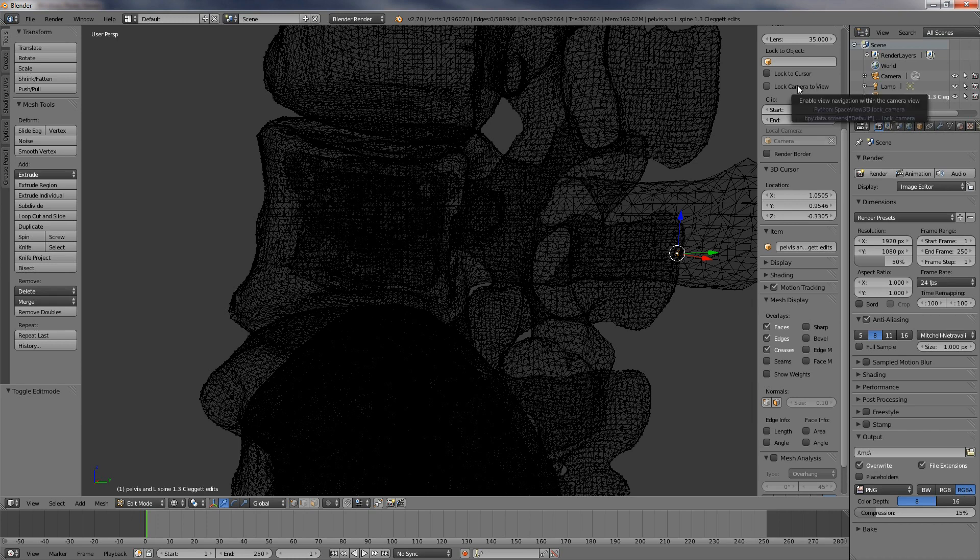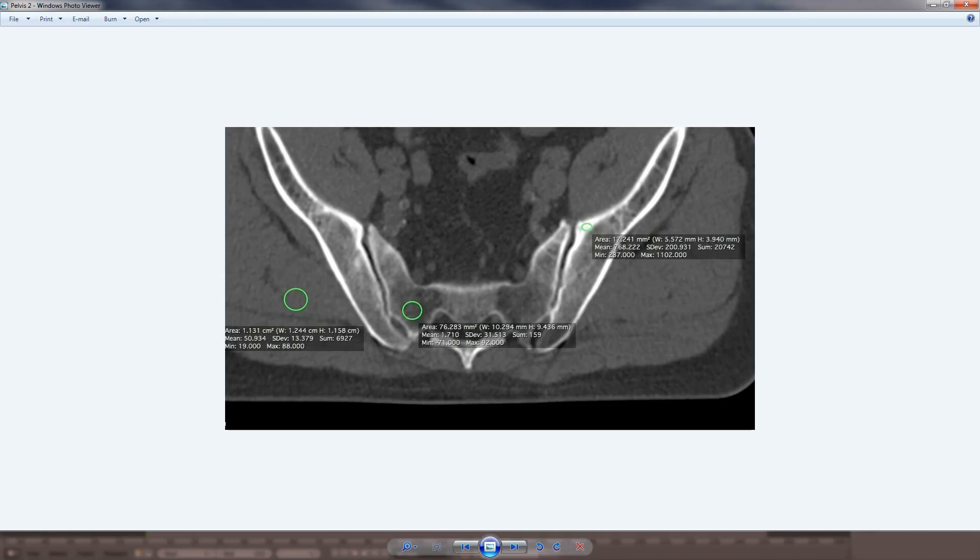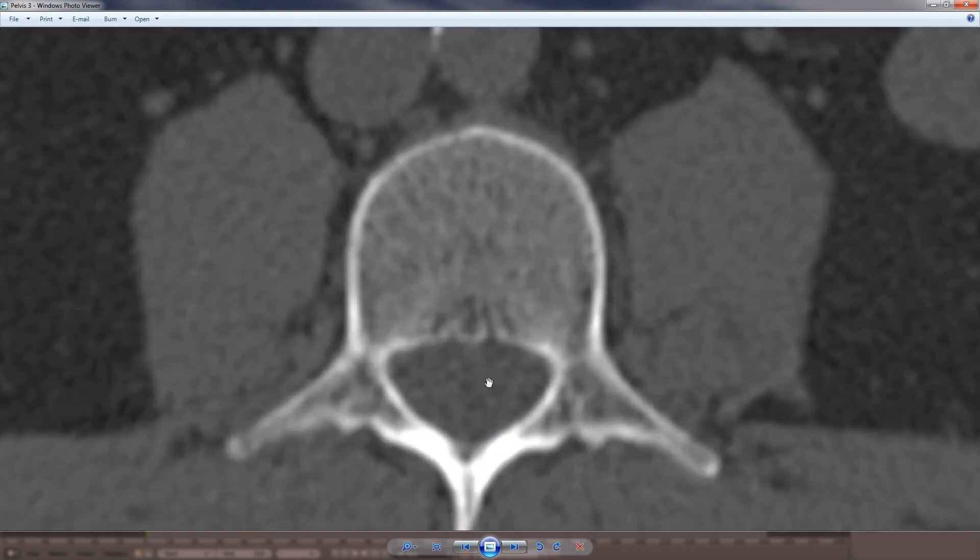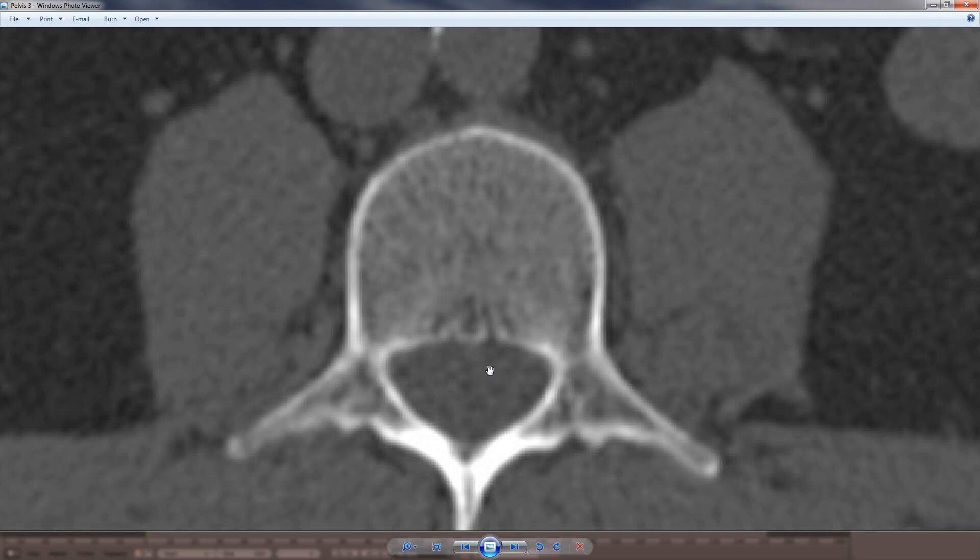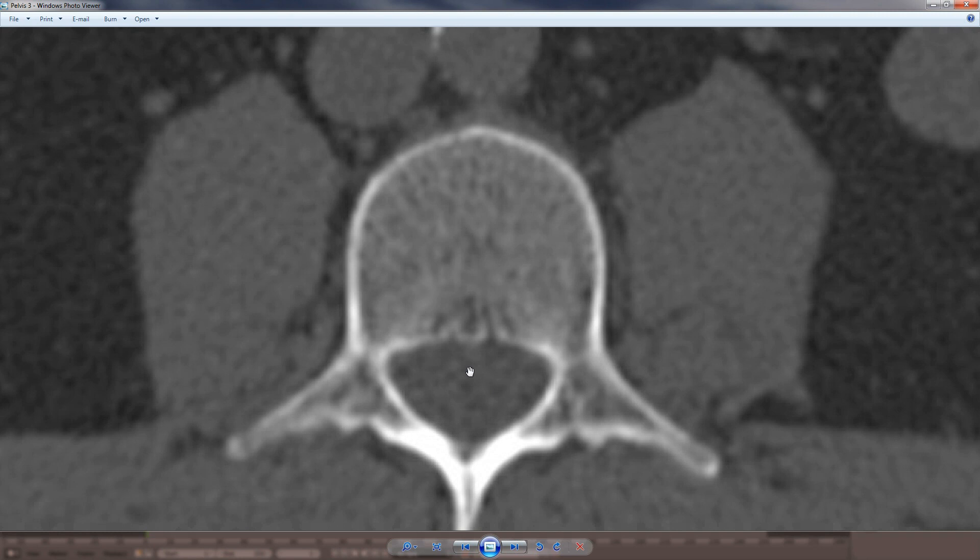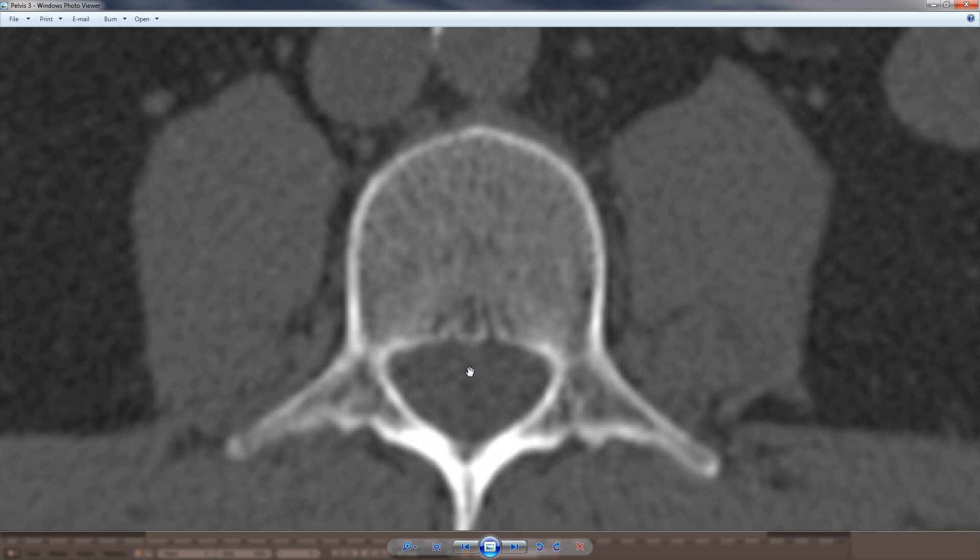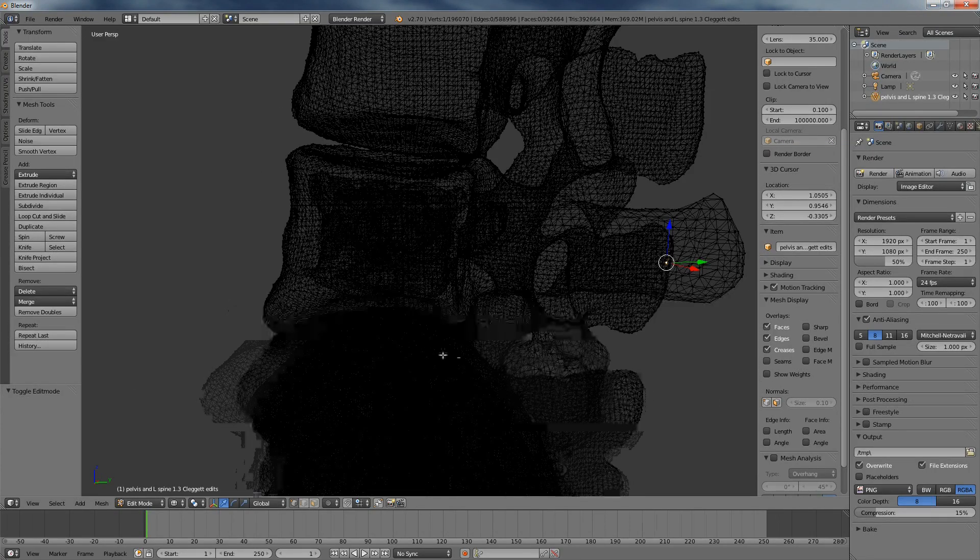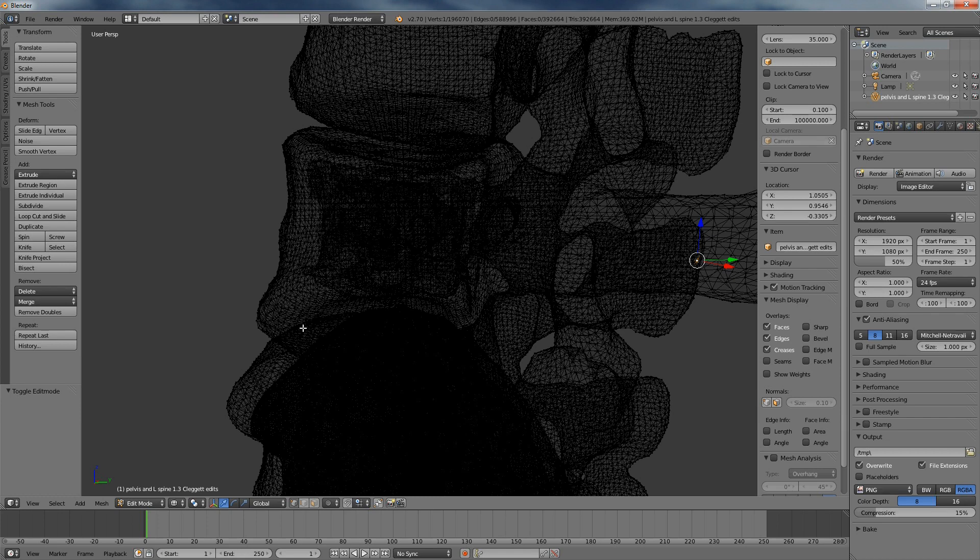So, how did this happen? If we look very closely at the CT scan, we can see that there are tiny defects within the bone. Here's an example of a lumbar vertebral body. Let's look a little bit closer. Can you see that? These little defects right here. These are called nutrient foramina. They are tiny holes within the surface of the bone that allow blood vessels to enter through the hard outer cortex into the medullary cavity. When the CT scan data was converted into an STL file, the surface generating algorithm crawled through these tiny holes and mapped the medullary cavity. This is the source of that extraneous mesh in our digital model. And if we're going to 3D print this model, we don't want this extraneous mesh. Fortunately, removing this mesh is relatively straightforward. So, let's dive in to how we do that.